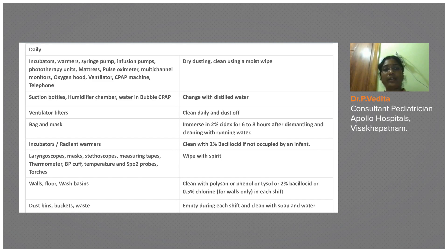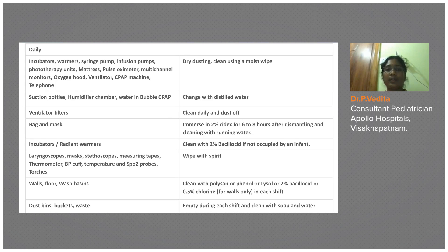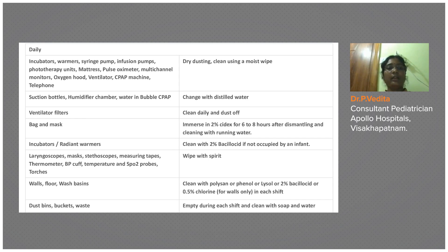On a daily basis, incubators and radiant warmers must be cleaned. After the baby's daily skin cleaning and morning procedures, we also clean the incubators. Every warmer must be cleaned for every baby. Syringe pumps, infusion pumps, phototherapy units, and mattresses all need to be cleaned daily.